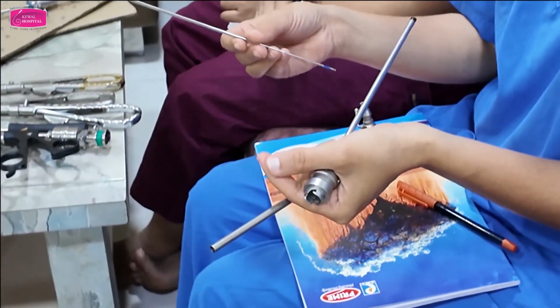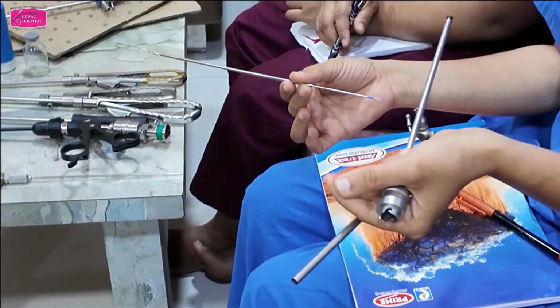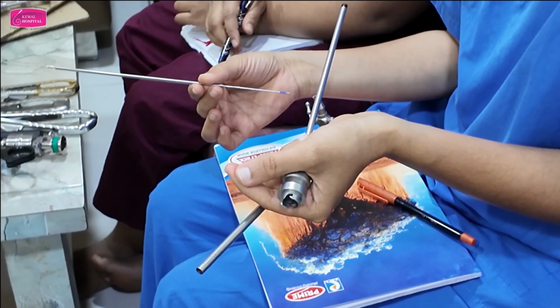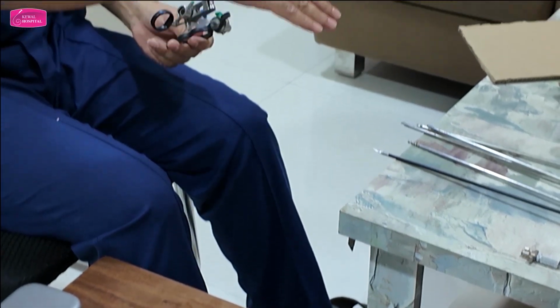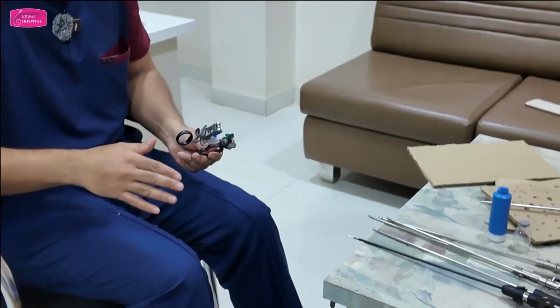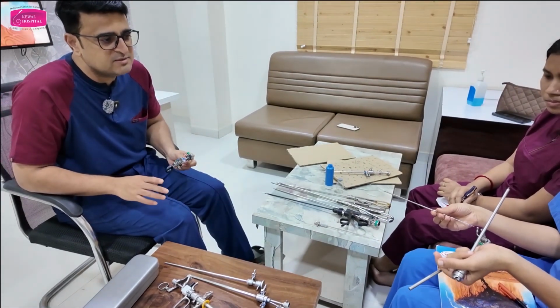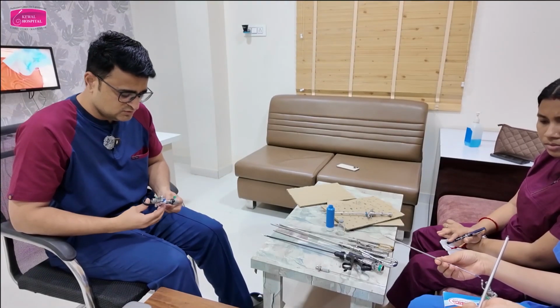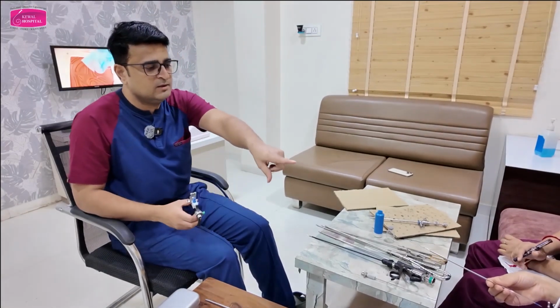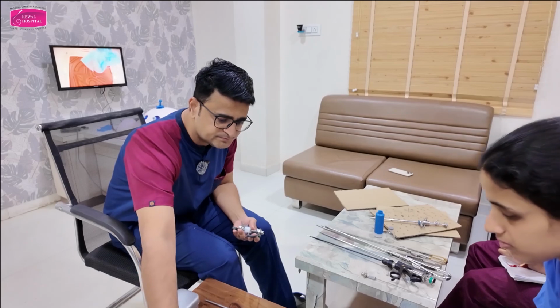Understood about the parts? Then you can change this one, whatever you want. If you want to do polypectomy, use this. Then change to the Collins knife for septum resection. Then change to the roller ball for endometrial ablation. These things remain the same. The only thing that changes is the electrode. So this is the working element. Okay. Any doubt about these instruments? No. Keep it down. Keep it here.